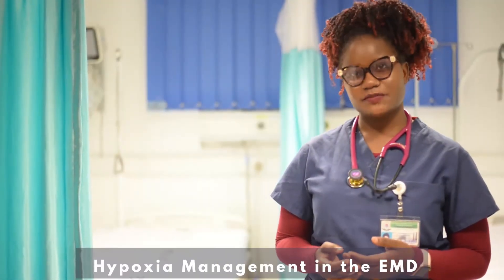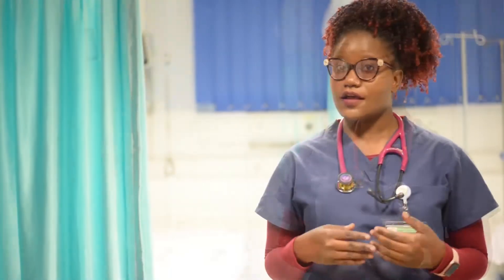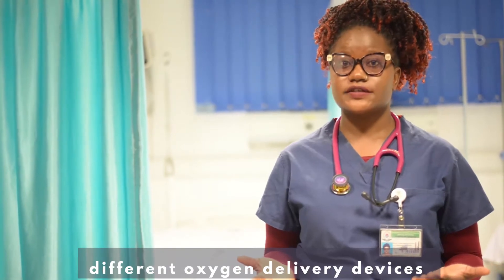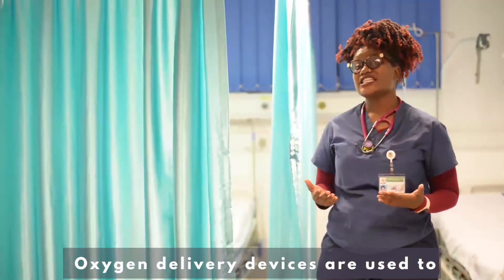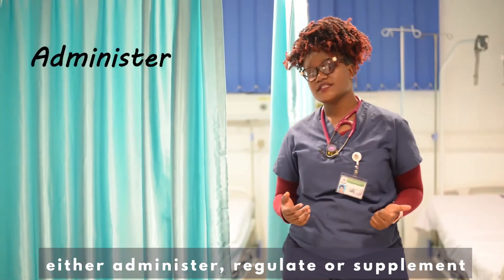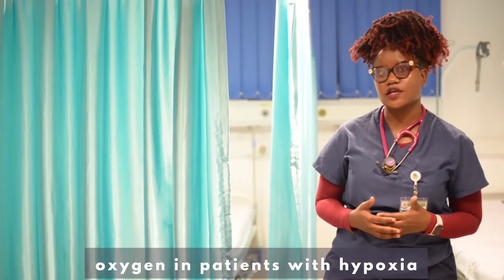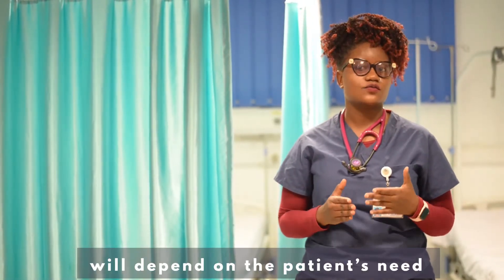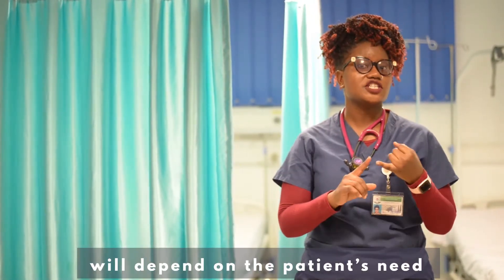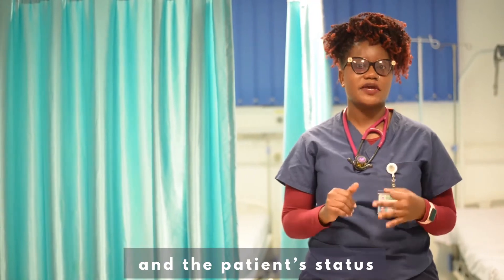Greetings, welcome to hypoxia management in the EMD. I'm going to talk and show you different oxygen delivery devices that are used in the EMD. Oxygen delivery devices are used to either administer, regulate, or supplement oxygen in patients with hypoxia. Choosing the right delivery device will depend on the patient's need, the device efficacy, and the patient status.